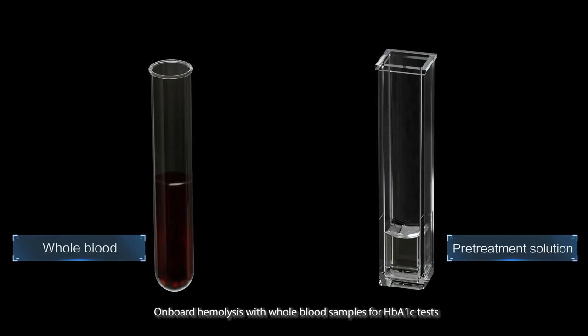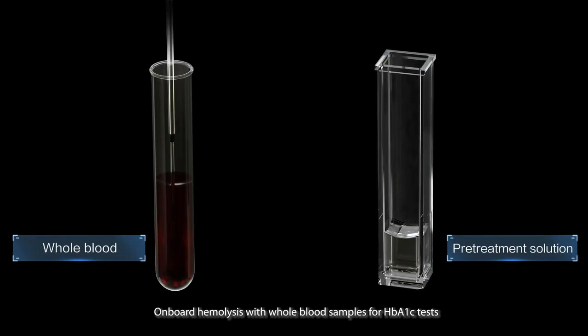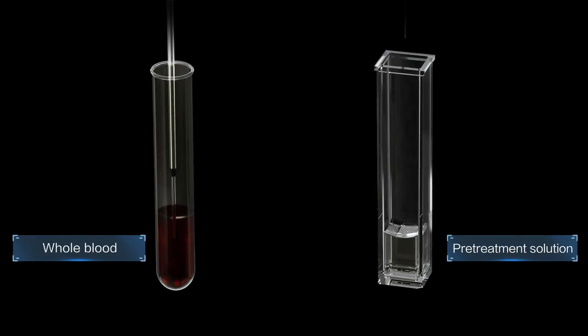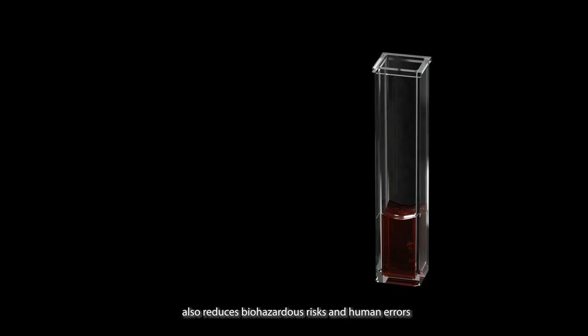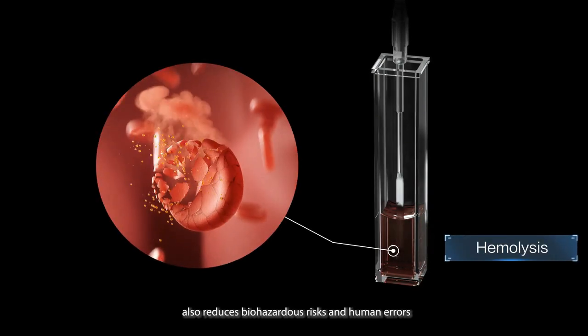On-board hemolysis with whole blood samples for HbA1c tests can simplify the laboratory workflow. Online pretreatment without any manual intervention also reduces biohazardous risks and human errors.